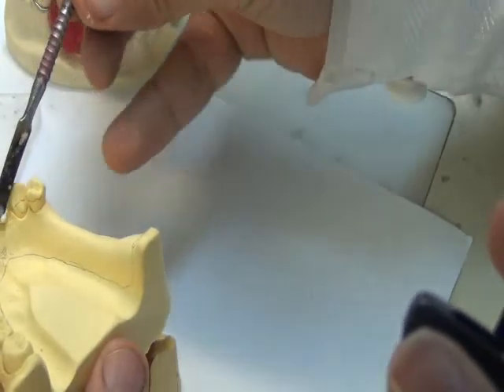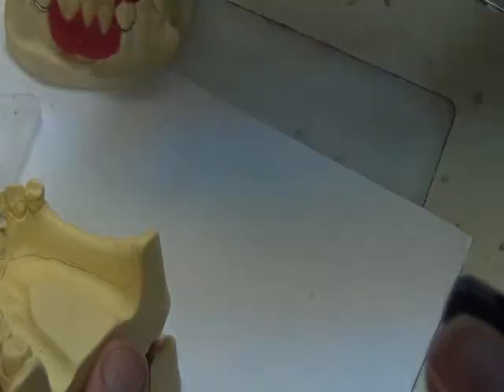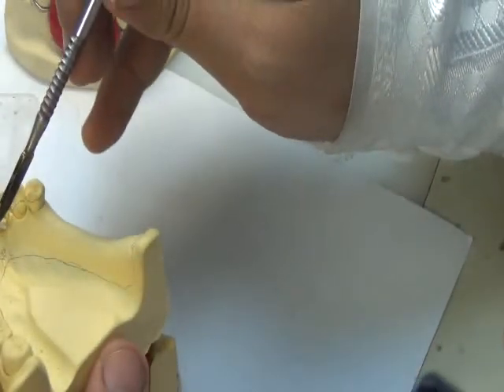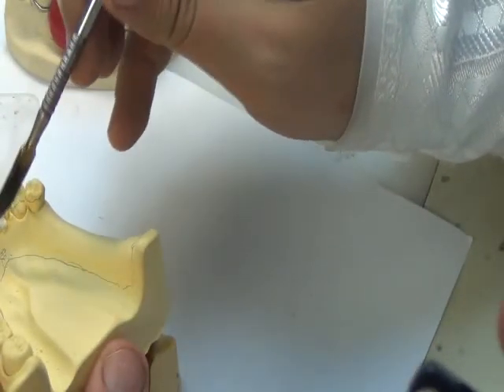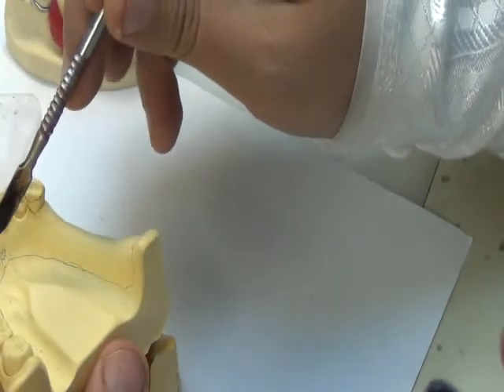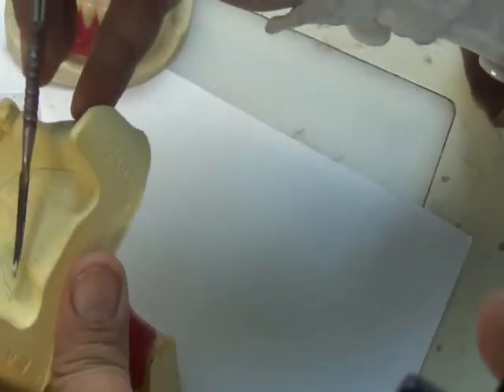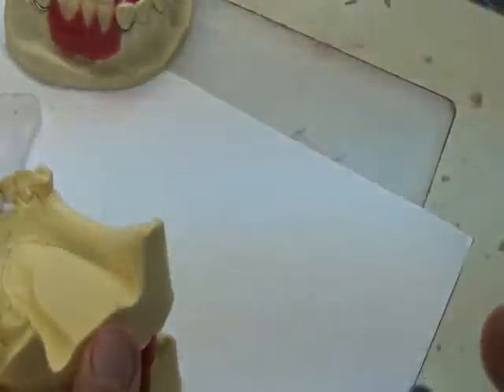So blockouts done by the surveyor, we call them parallel blockouts. Arbitrary blockouts are done by hand, and we aim at, first of all, the marginal gingiva in these blockouts. If I also have an undercut in the lingual side, I also do this arbitrary blockout.